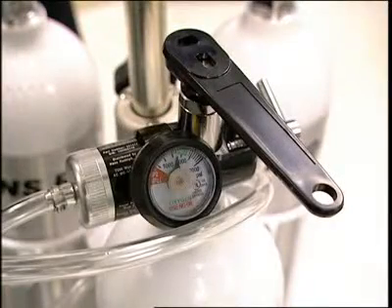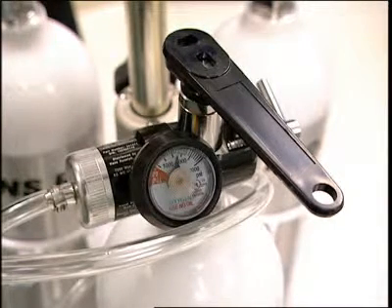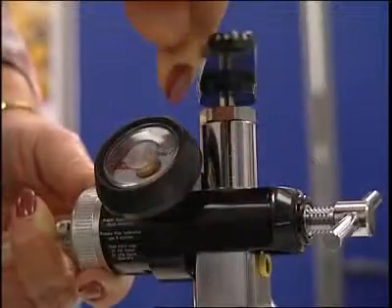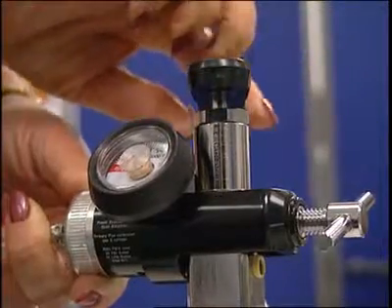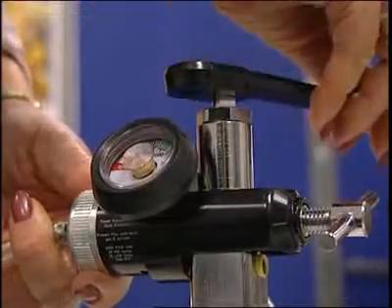To open and close the gas cylinder outlet valve, use the flush-type valve wrench provided in the DLCO simulator kit. When you are ready to perform the testing, turn the valve counterclockwise to open. Then, when you've completed your testing or you need to change from using one gas cylinder to another, turn the valve clockwise to close it.